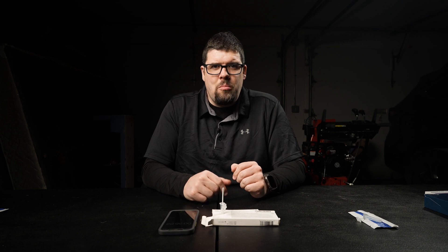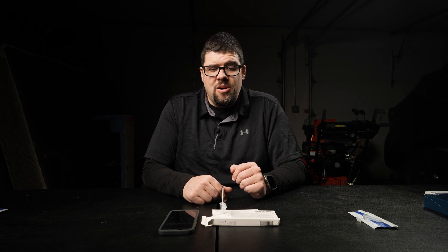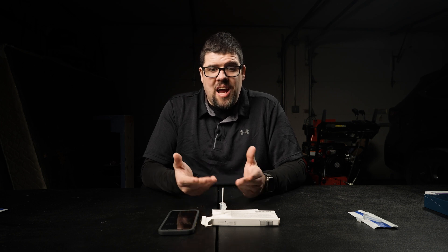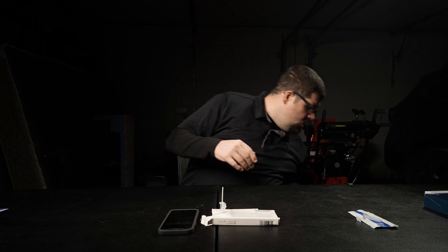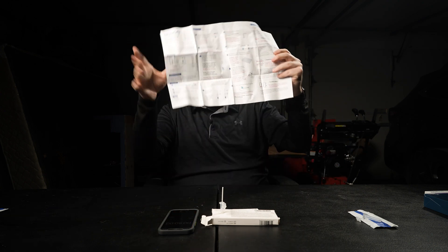The more likes you get, the more people will see this video, and the more people that see this video will just have an easier time taking this test. The instructions are huge — big old instructions here. I like how-to videos, that's why I'm doing this. I didn't really see anything on YouTube explaining this the way I like it.